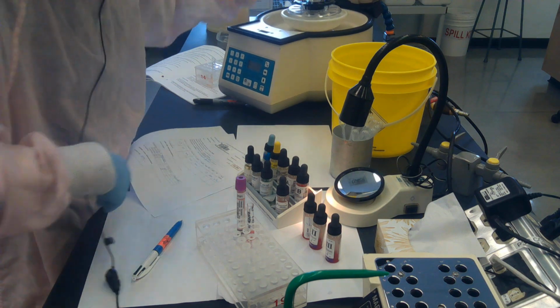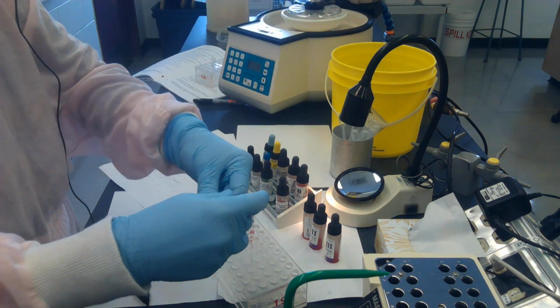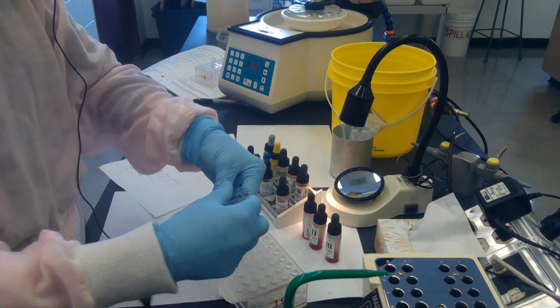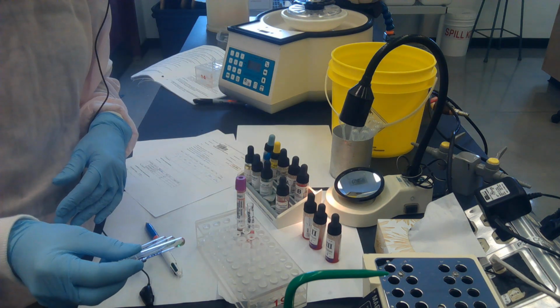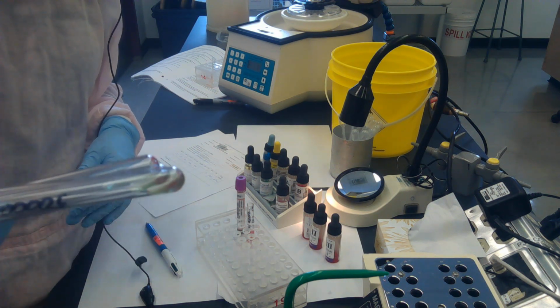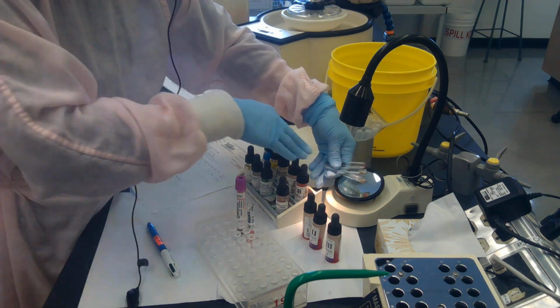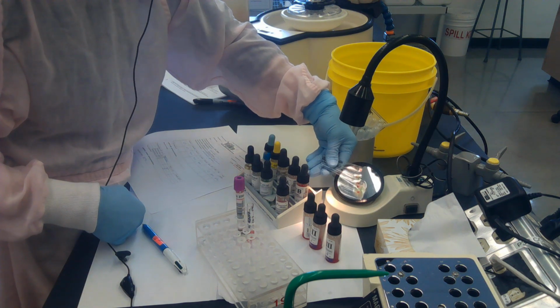So my screening cell tubes with the check cells are ready. So I pull those out again, placing the button up. It's facing towards me, and I waggle. So I'm just using the liquid to peel off the check cells, and check cells should give a nice positive result. I'll hold them over the mirror. They're not really necessary because they're very strong, but you might be able to see that, okay?